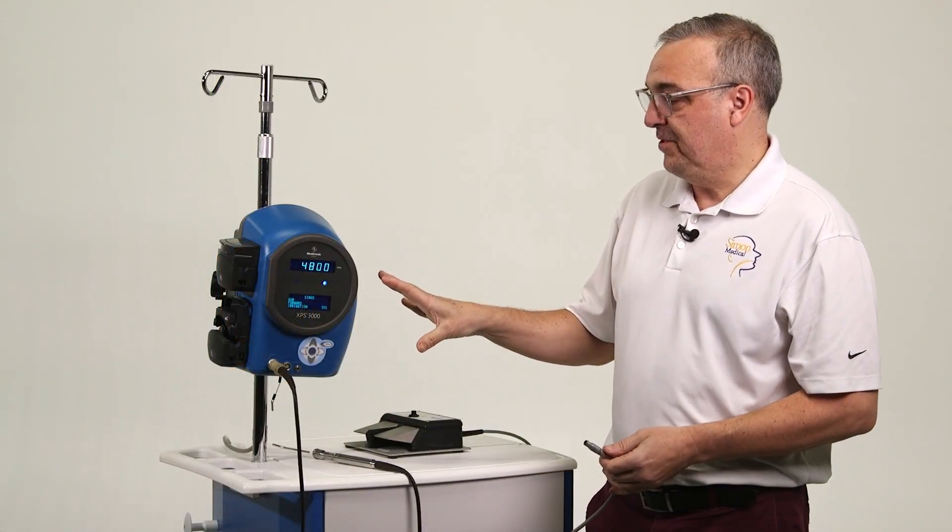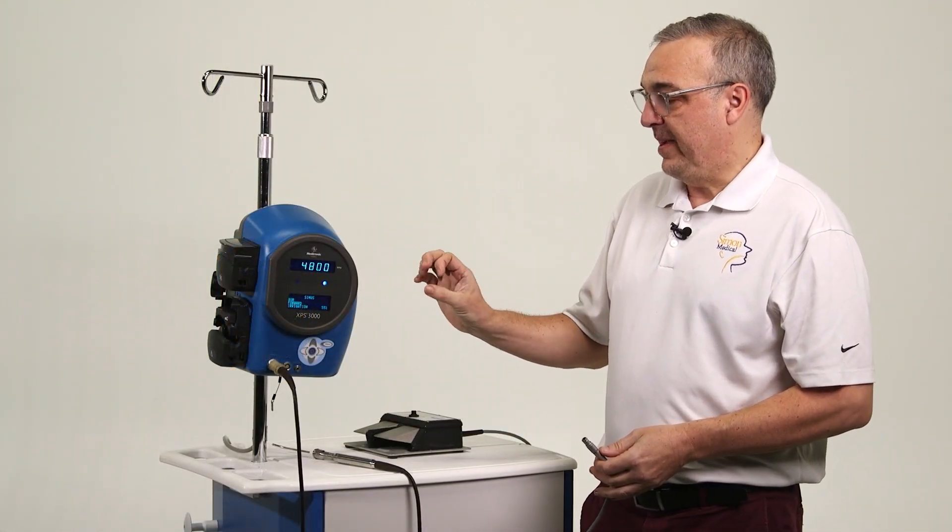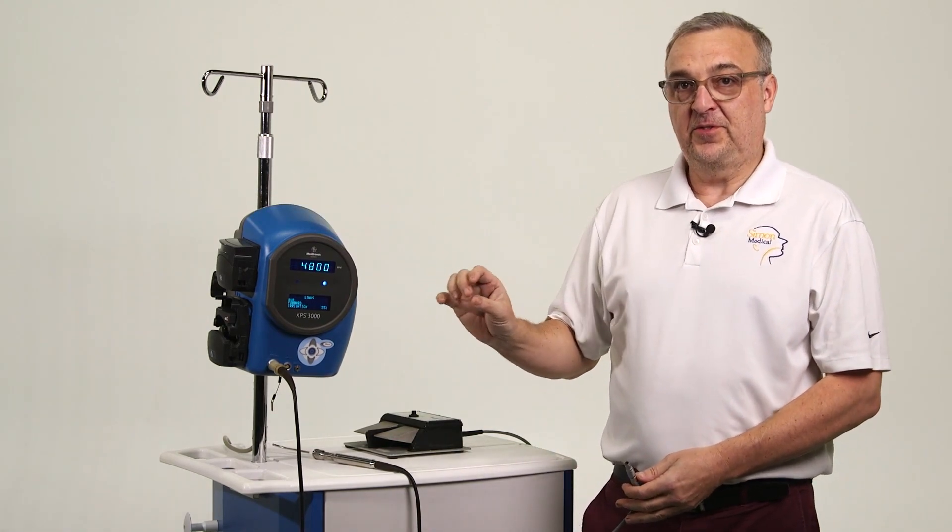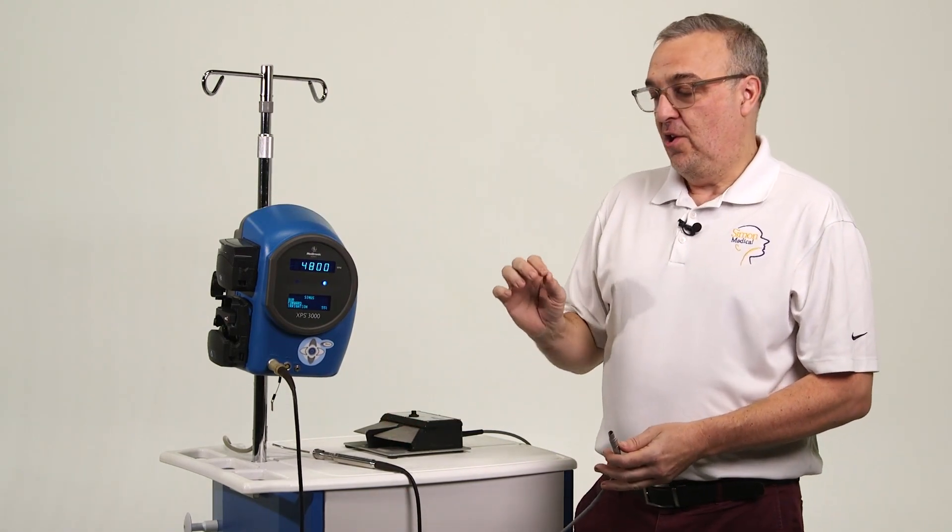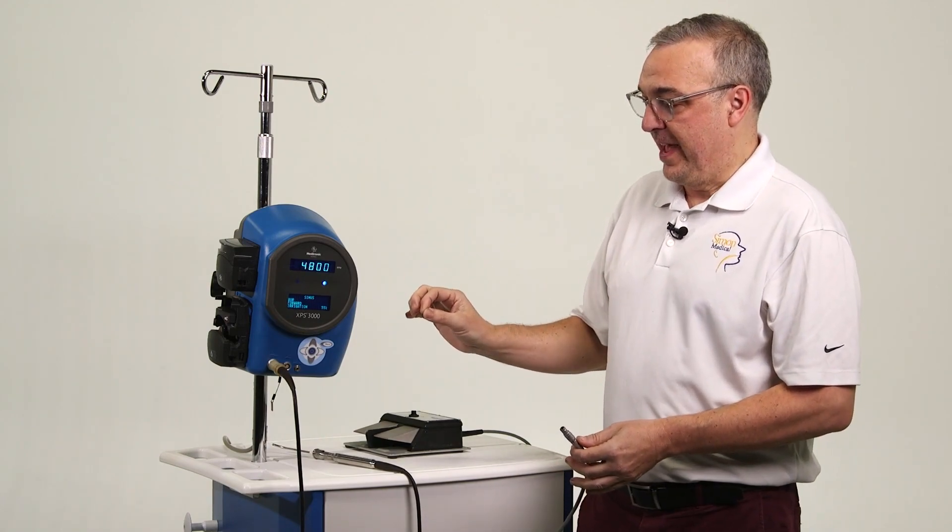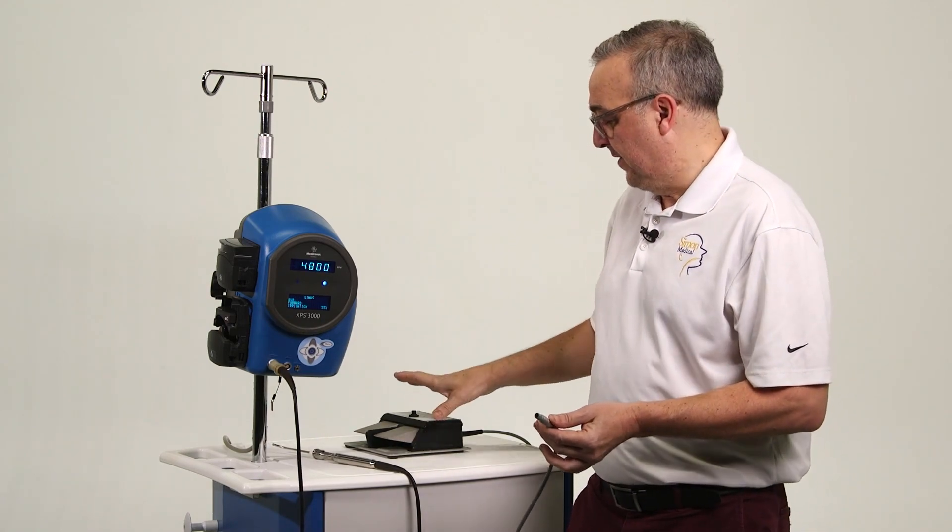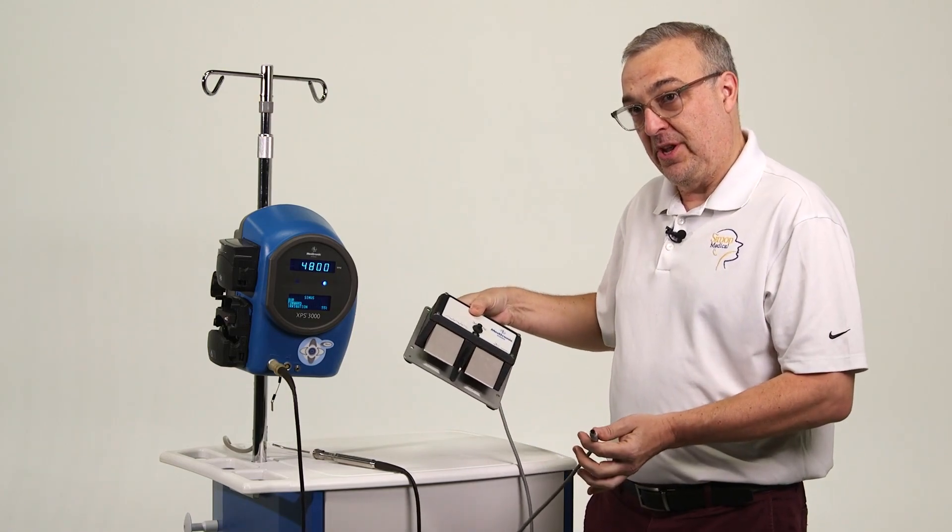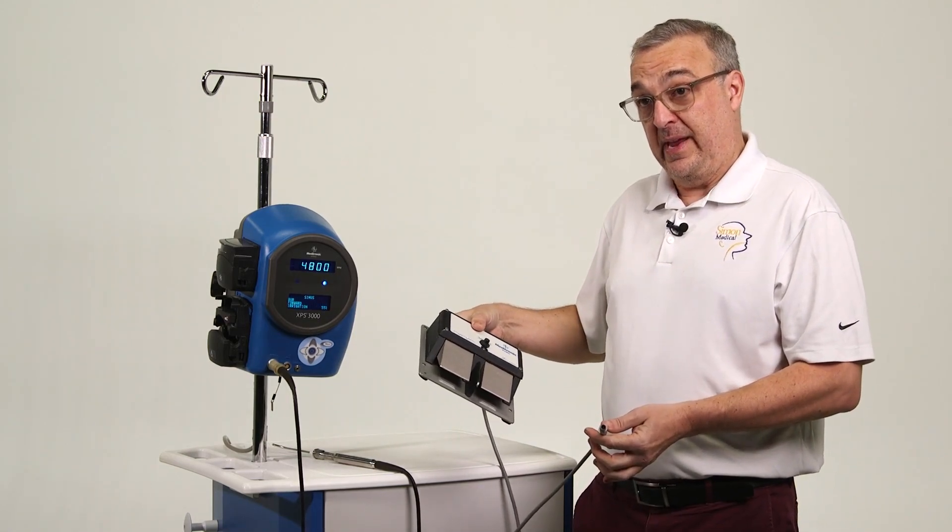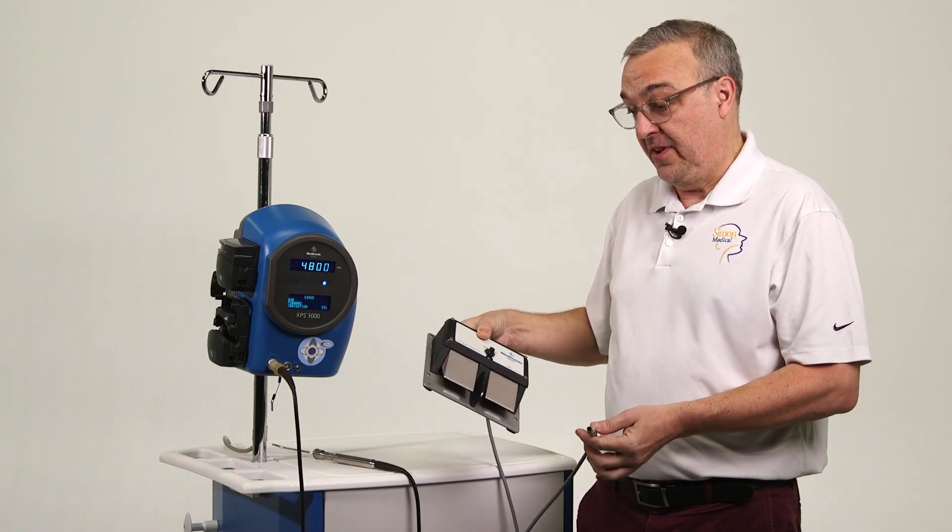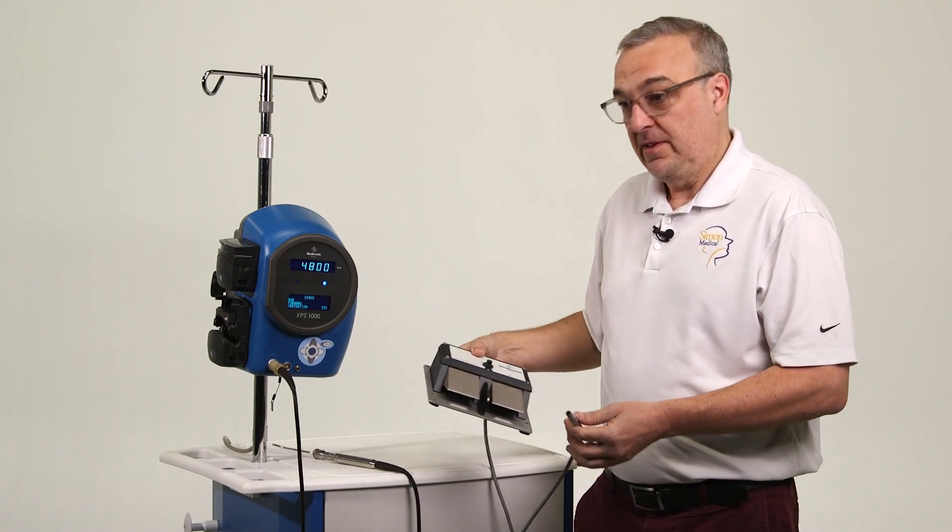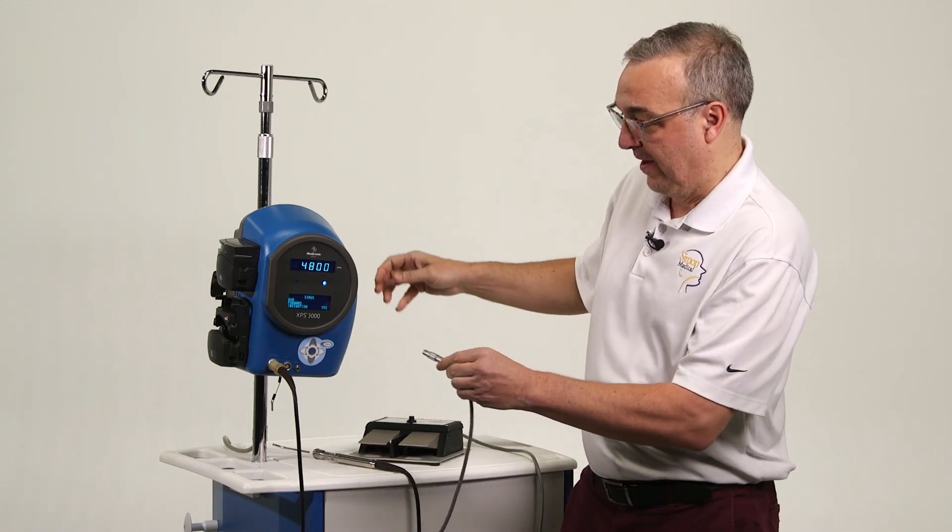So we've covered how to make manual changes directly on the XPS with regard to speed and rotation. The other way to do that, once we've incorporated the multifunction foot pedal, which I'm going to now plug in, the surgeon will be able to make those adjustments from foot control under the OR table. So there's two ways to do what I've just shown you.